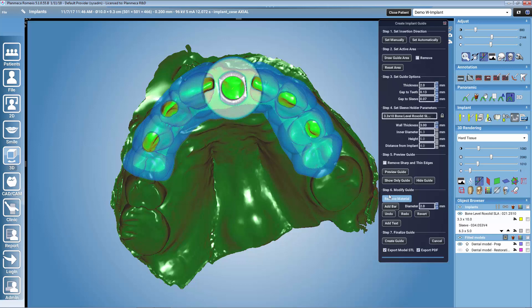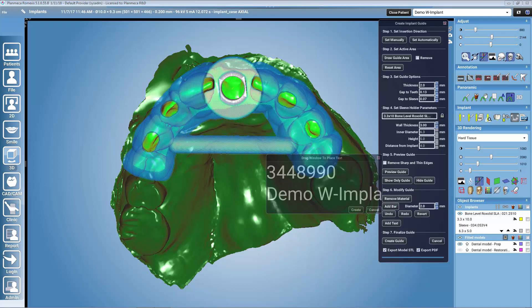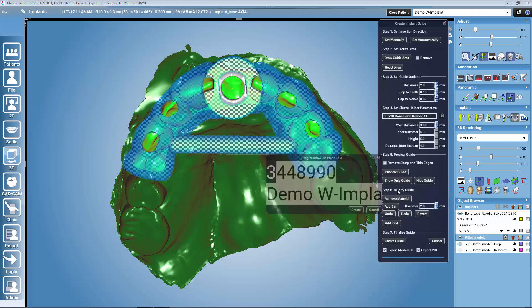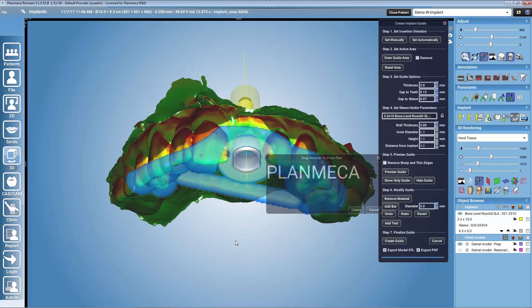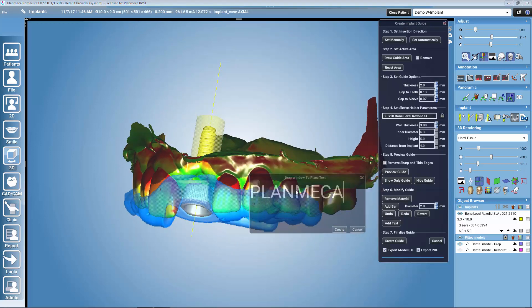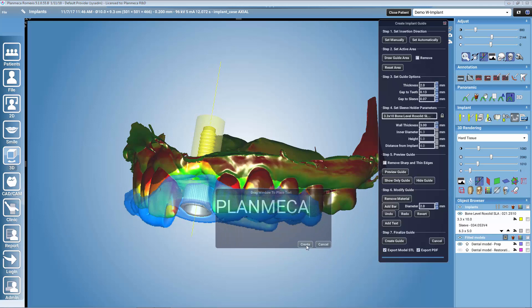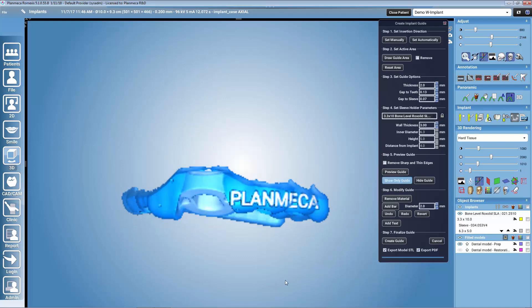We may also add inspection windows wherever we wish them to be. We can add a bar if we need to add more strength to the guide. We can also add a text — we rotate the model and place the dialogue on top of the guide where we want to place the text. We can look at the guide without anything else to check if we are happy with the design.